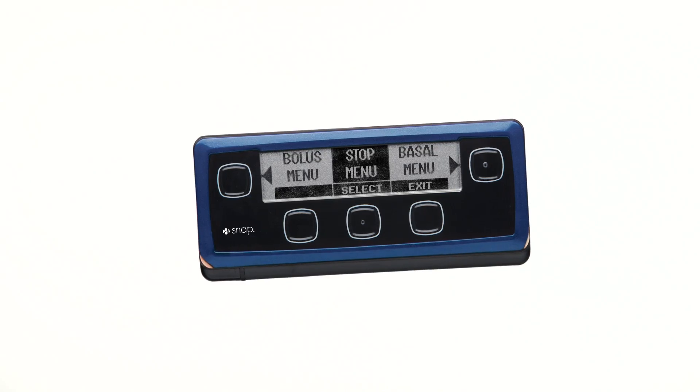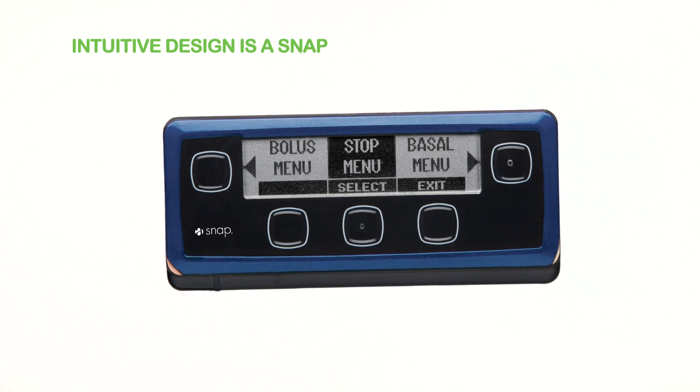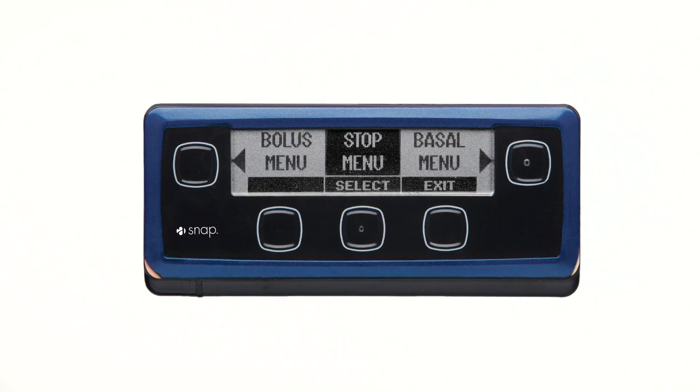This is a clean change — it's a new insulin, it's a new battery each time. You don't have to worry about it. It's streamlined the whole process. They've designed the pump so that everything that you need to program is available right away. The screen is really easy to read, and the sequence of the buttons is really simple and really intuitive.